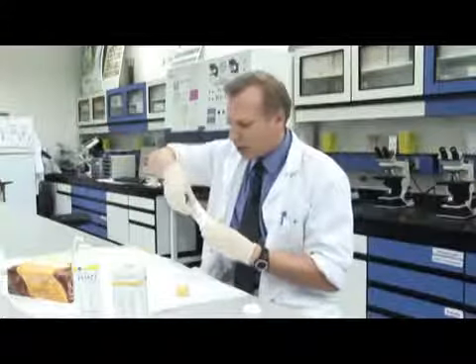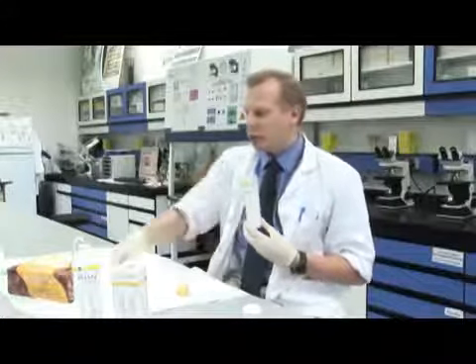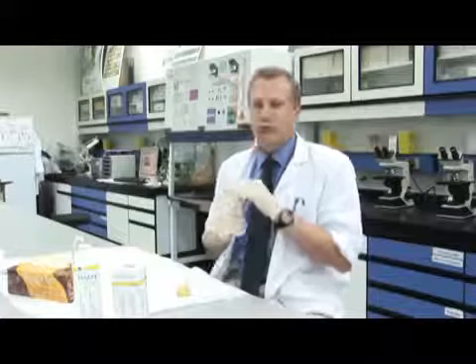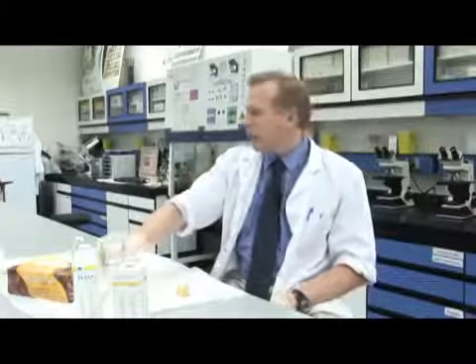Sometimes we bleed a little bit in our urine if we've been exercising very hard, maybe run a marathon or something like that, and that's not unusual. But if there's a very large amount of blood, then we've got cause for concern and we'll do further tests. But it's very useful as a non-invasive test we can do. We can easily get a urine sample and run a test, and we'll know in a few minutes if there's a problem, and then we can do other tests. And that's basically how the urine dipstick analysis test works.